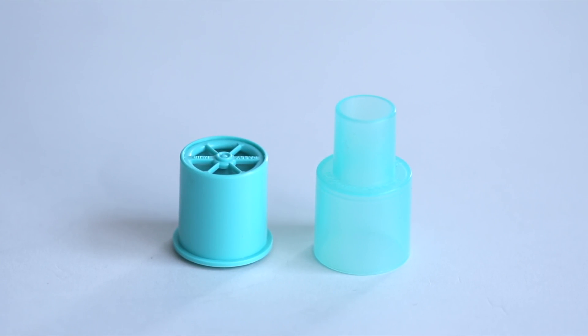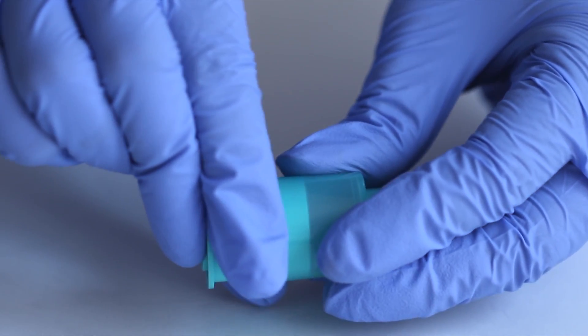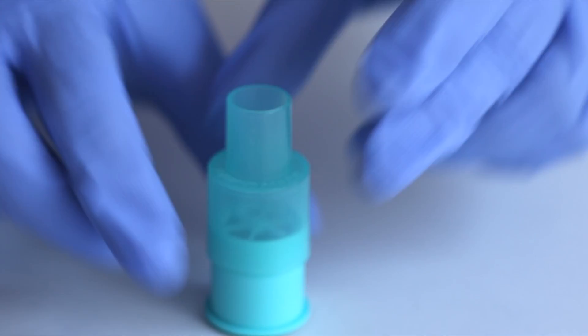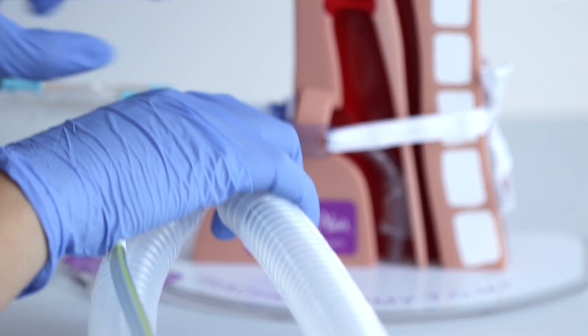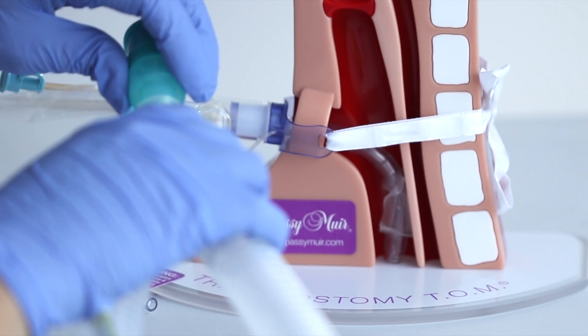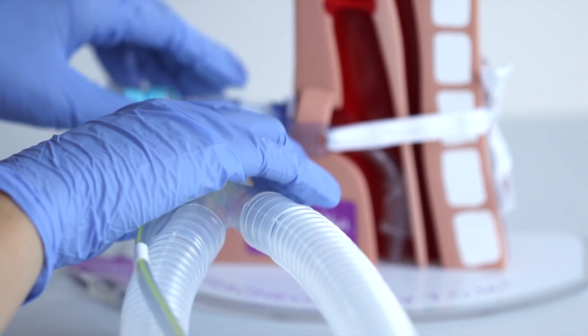When using the elbow-type inline suction catheter, the PMV-007 aqua valve can be attached by using the PMV-AD1522 step-down adapter. The PMV-AD1522 step-down adapter can be attached to the PMV-007 for inline application to the Vent-Y.